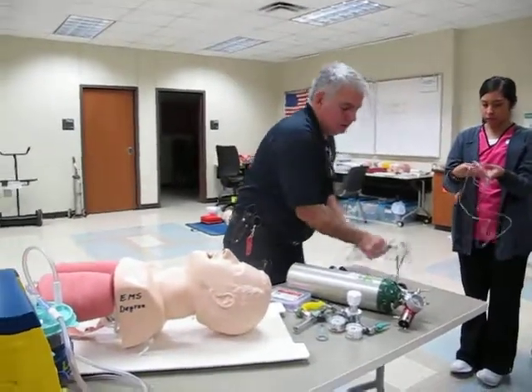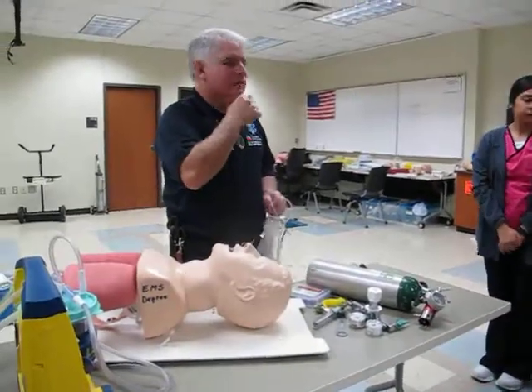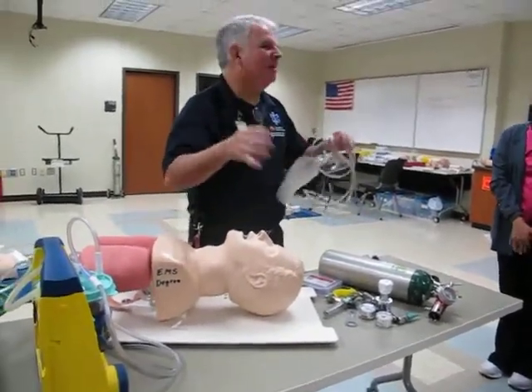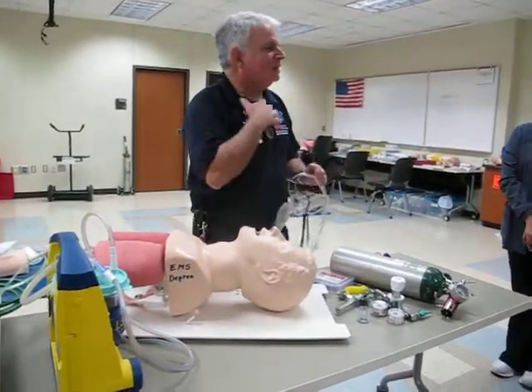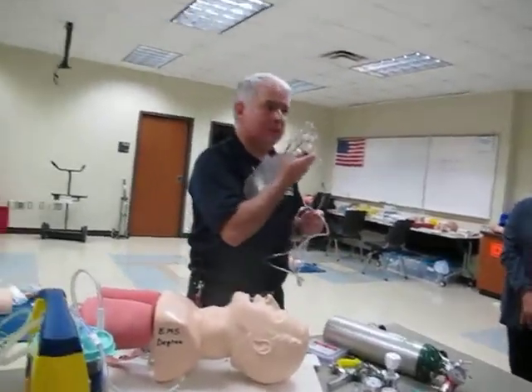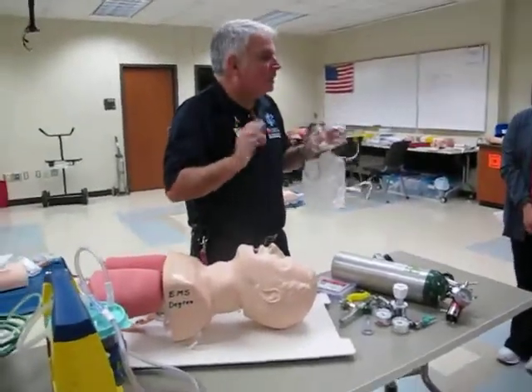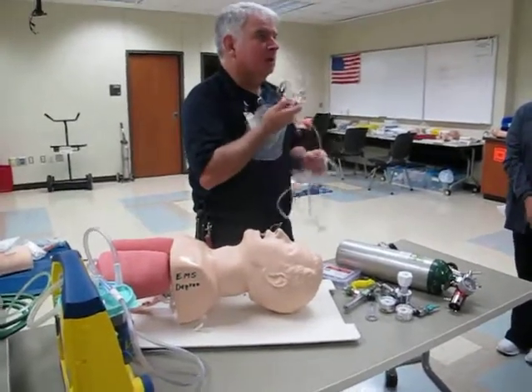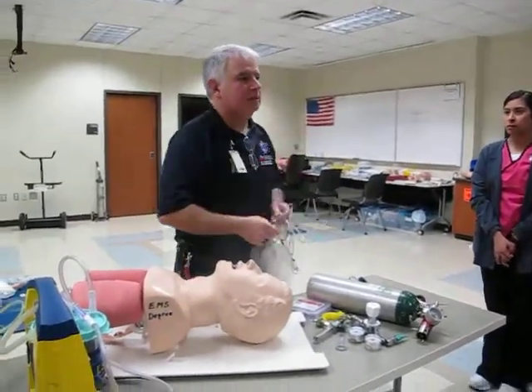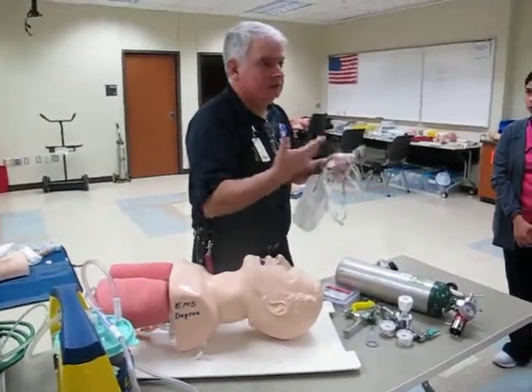The next device is one step up. In EMS practice, we would apply a nasal cannula to a patient that is just slightly short of breath, or if they don't tolerate a mask — some people get claustrophobic and won't tolerate having something over their face. If I want to put on a non-rebreather for high O2 and they won't tolerate it, I'll give them a nasal cannula cranked up to maybe six liters per minute — that's the best I can do to get something on board.